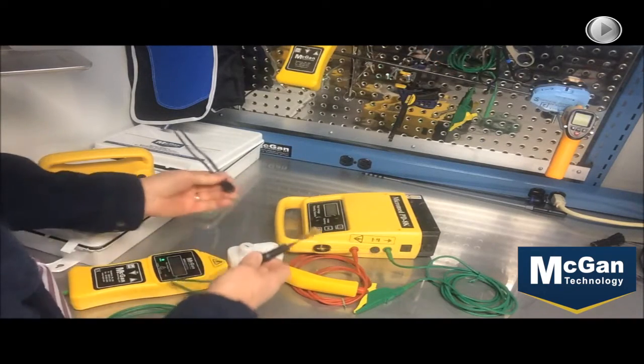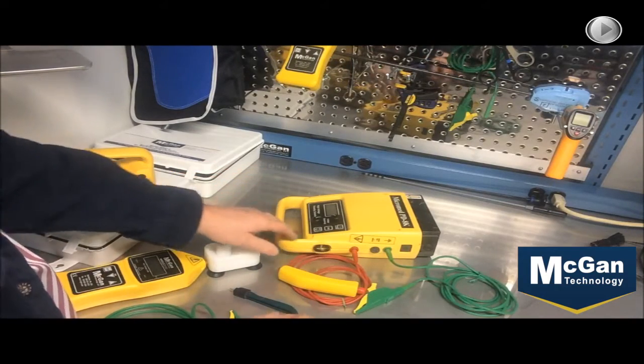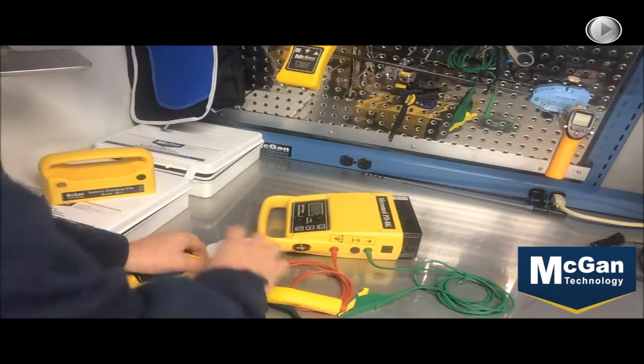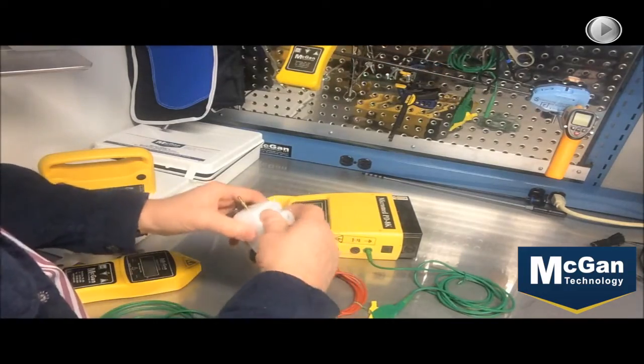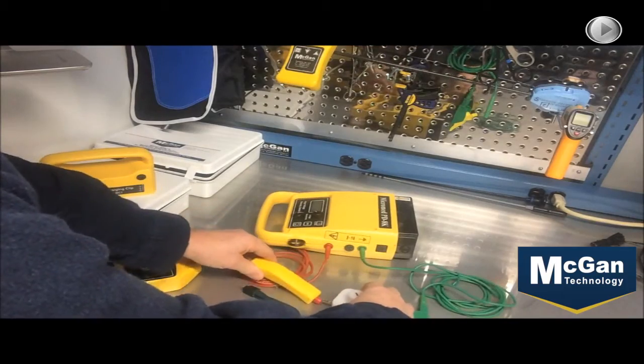And then you can simply move on and do a lot of other instruments. For those of you that still have a PD-8K unit, we would take the saddle electrode along with the bipolar fixture.